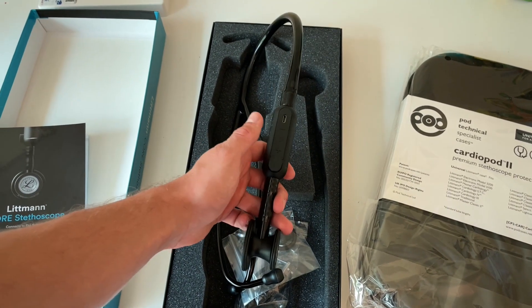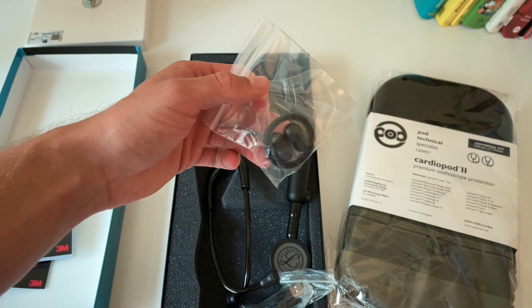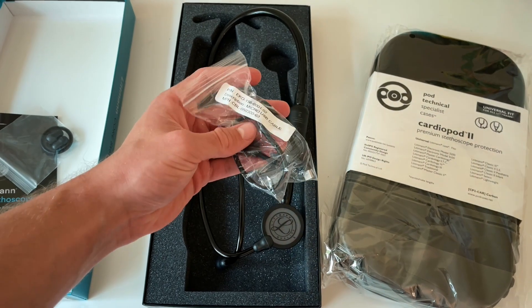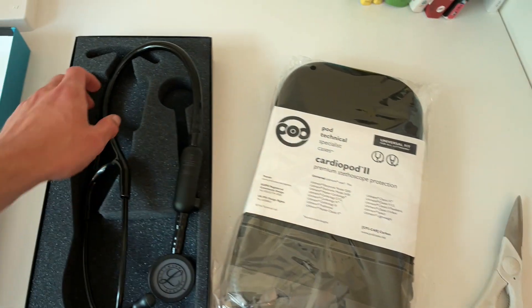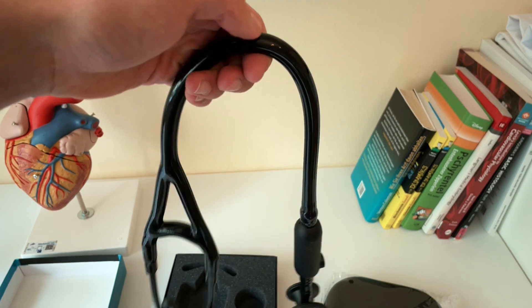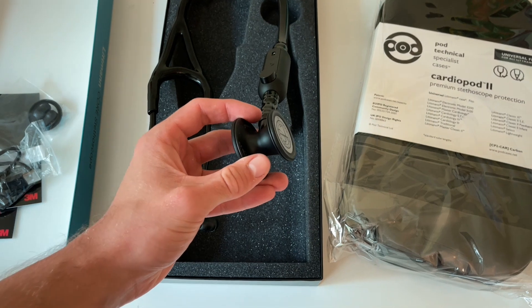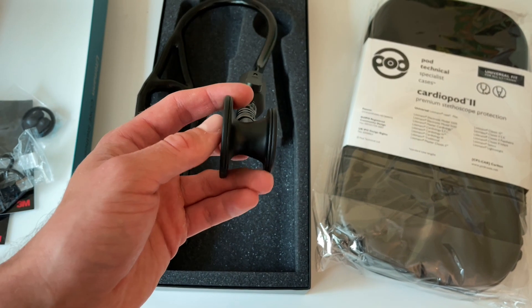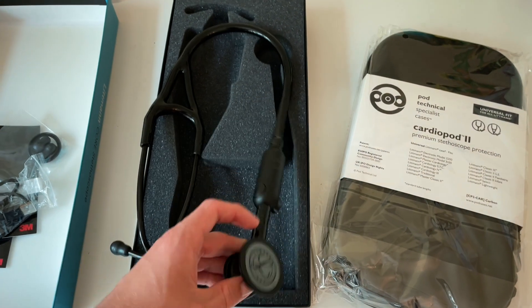And this little thing in here makes it so special. Here you also got these little ear pieces. And this is just for charging, I think. Let's look a little bit further. It's not so heavy, and I think it seems really classy. I got the new black version, so there's no rainbow here — there's also another model where you can have a rainbow, but I thought this one would look more classy.